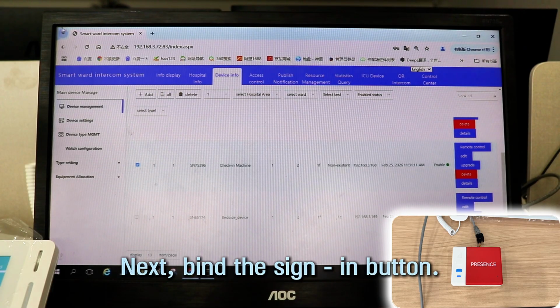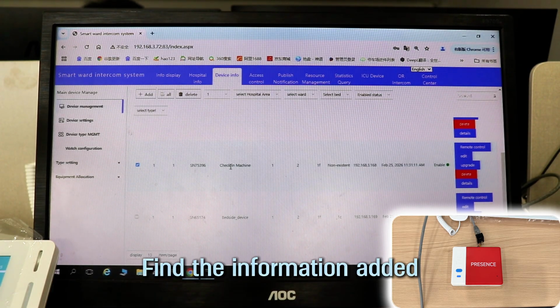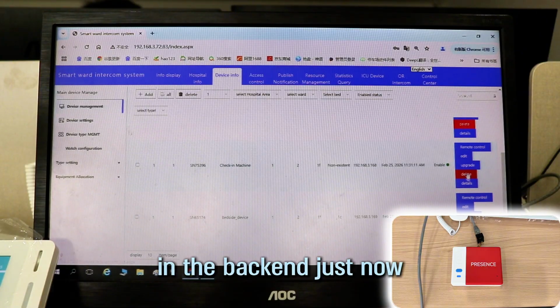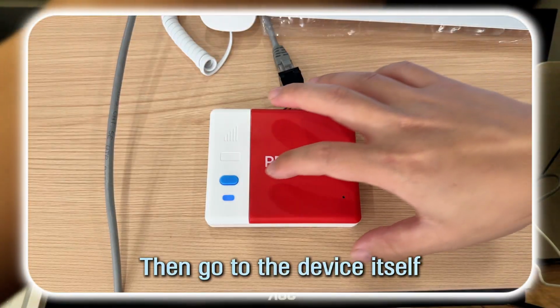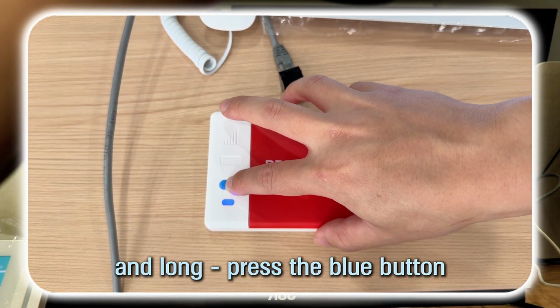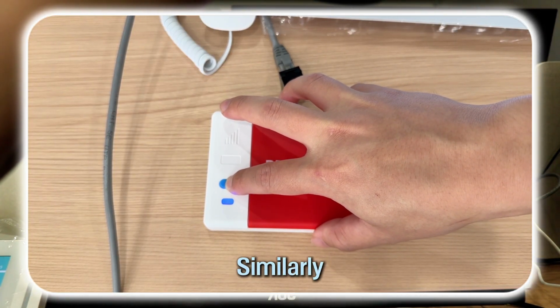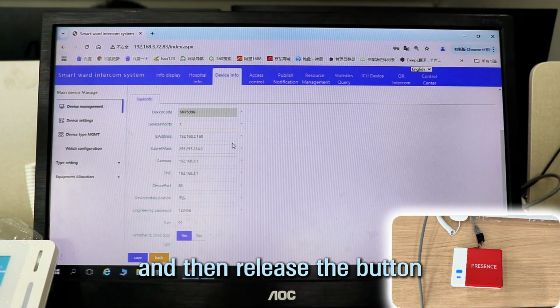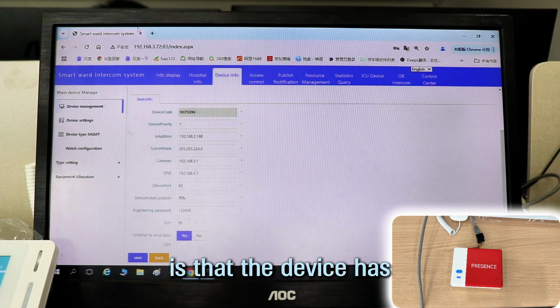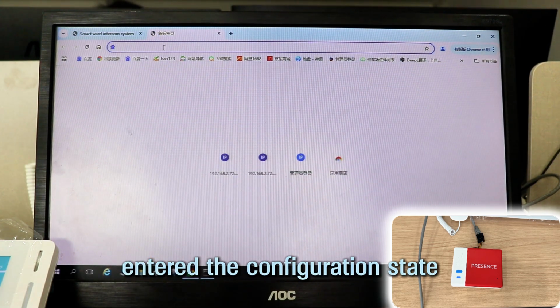Next, bind the sign-in button. Find the information added in the back end just now. Click to view information such as IP address. Then go to the device itself and long press the blue button. Similarly, long press for 5 to 6 seconds and then release the button. The meaning of this sound is that the device has entered the configuration state.